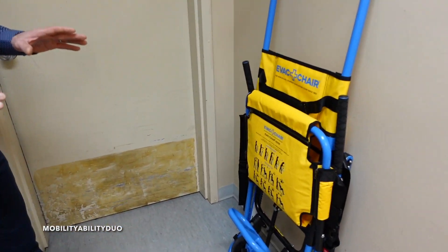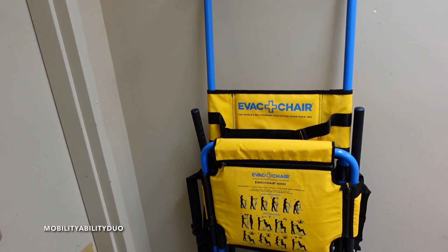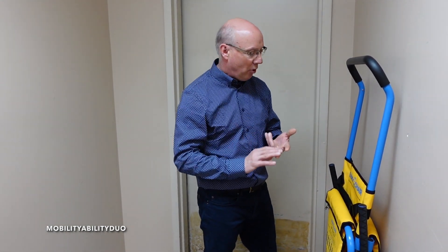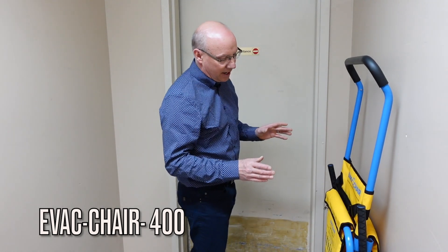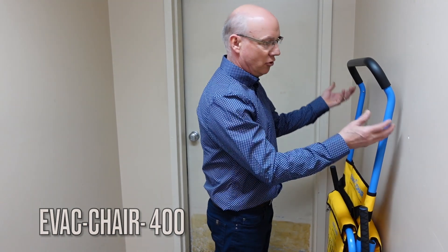This is a product that I think is going to be a really big seller for us. In my personal opinion, these are going to be required down the road, because if there are fires in a community hall, a church, an apartment - anywhere you have to get people down - not everybody is mobile enough to go down two flights of steps. So these are called EVAC chairs, and the design is they fold up, kind of like a fire extinguisher.